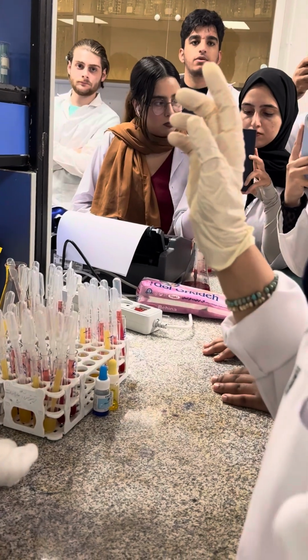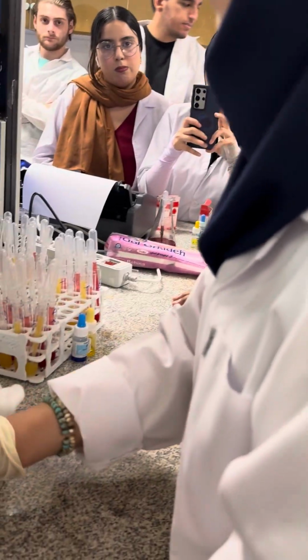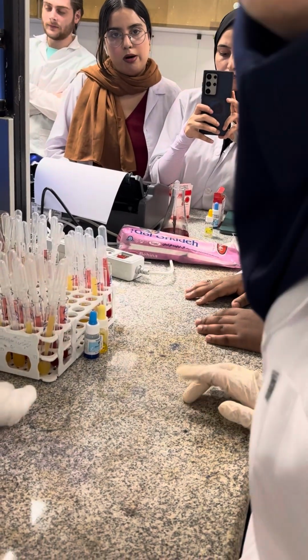And about ASO, my colleague is preparing some tubes for you, and after that I show you the ASO. And just it. Any question? Yes.